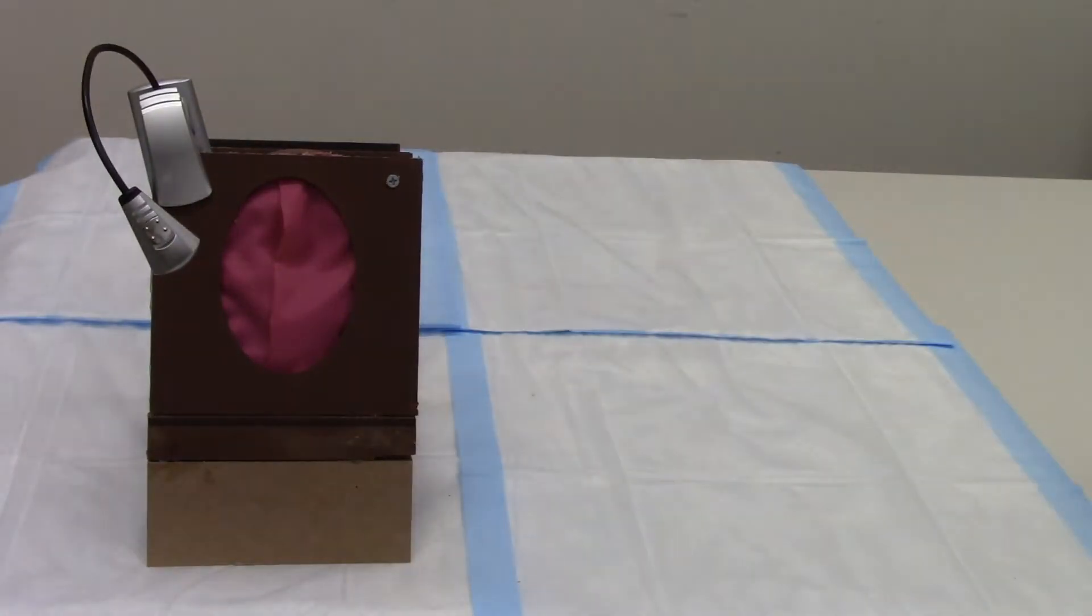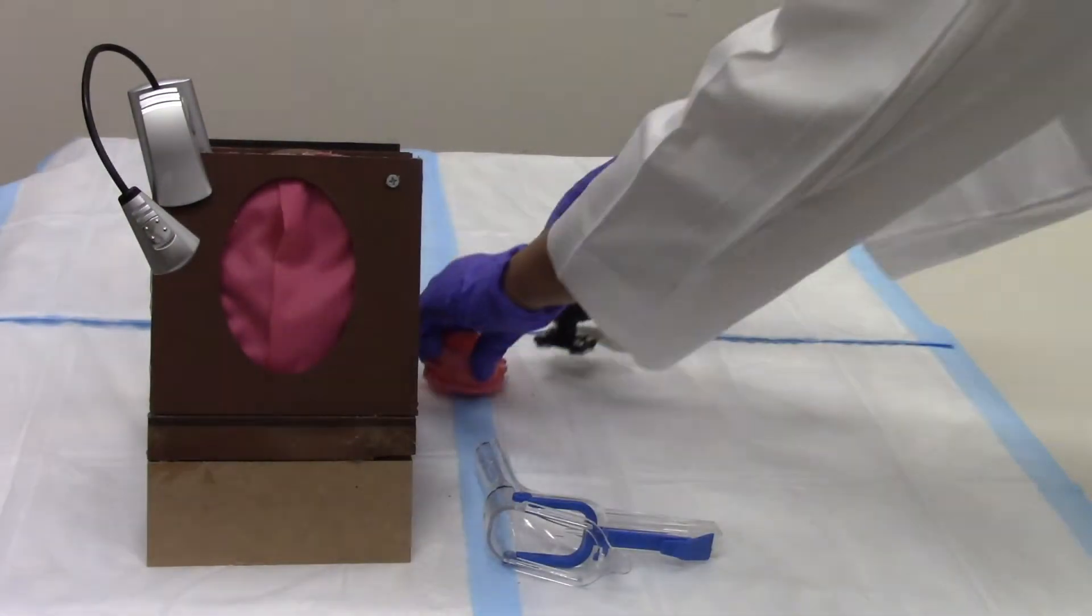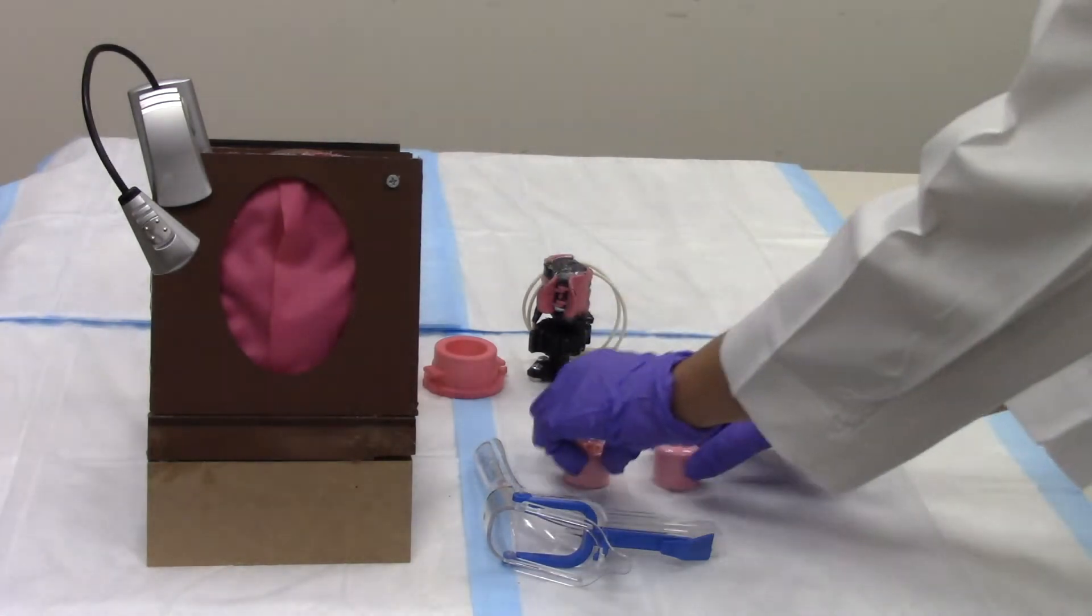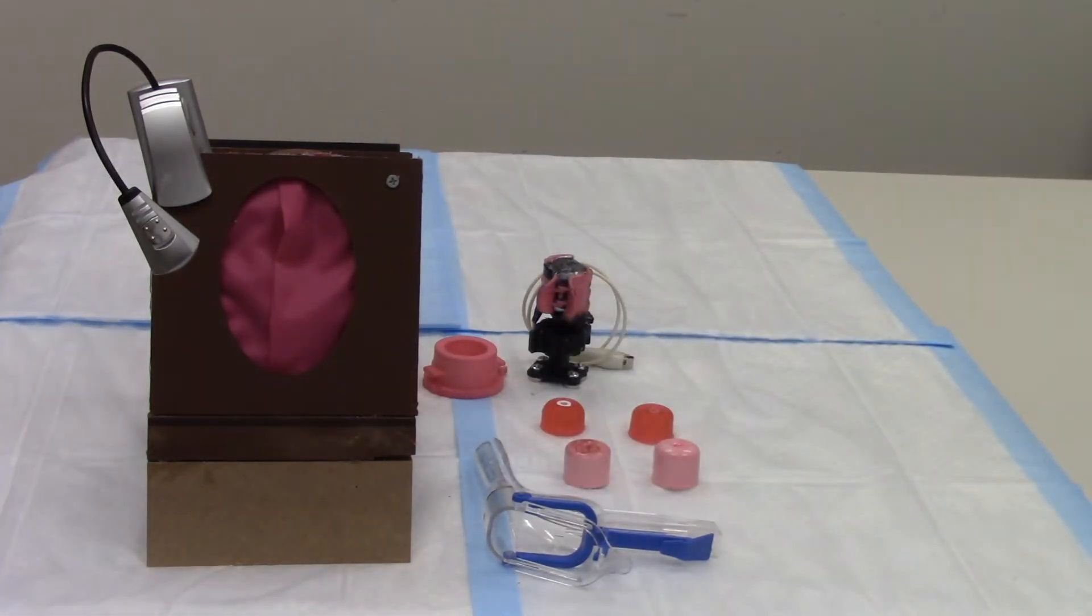Lucia consists of a wooden pelvic frame, plastic speculum, two cervical model holders, 3D printed cervical models, and components to make gel cervical models.